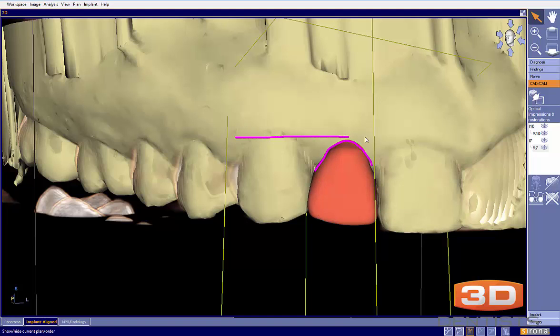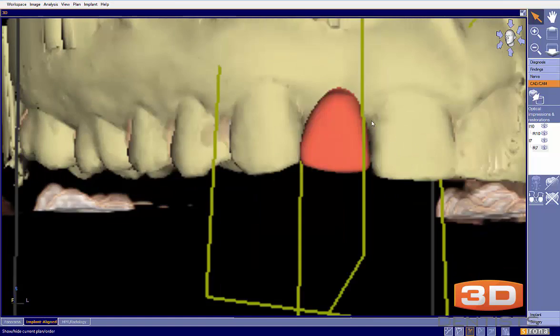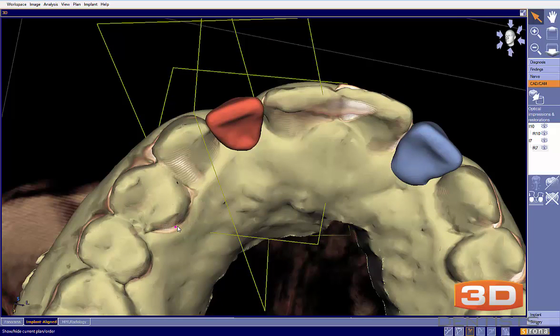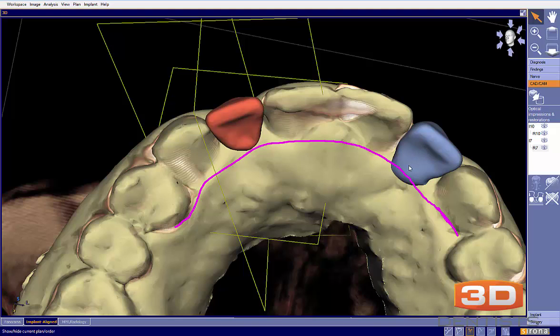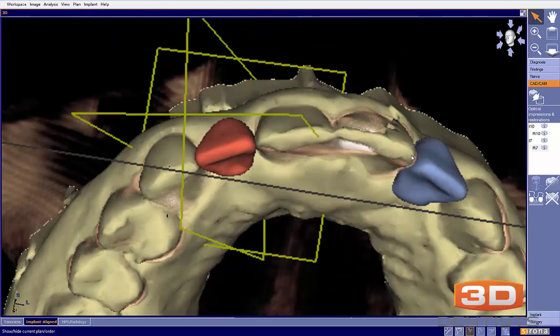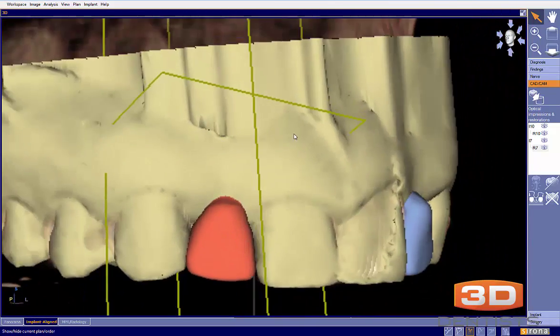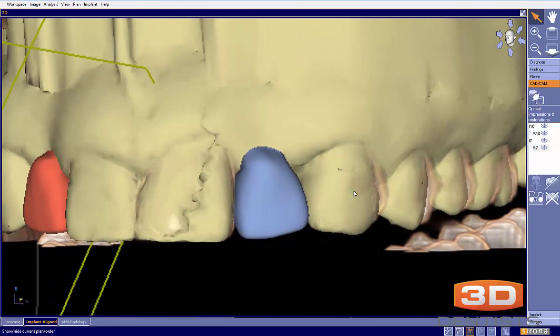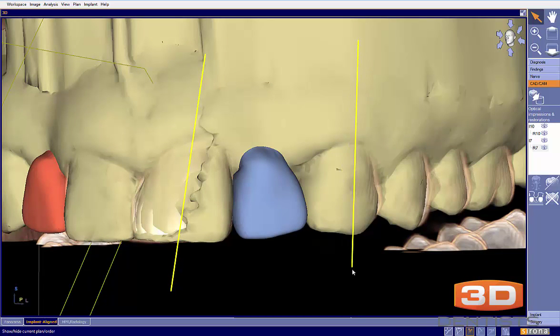Looking at the gingival margin on number seven, the lingual margin looks to be pretty accurate there. But as we go around, we can clearly see that our lingual margin on tooth number ten is quite inaccurate. My guess would be that it's probably not in occlusion or it's going to be bulky. This could lead us to placing an implant too lingual and having a bulky tooth there — it just doesn't accurately represent what we're trying to achieve. On this angulation, this part of the tooth is just not designed as ideally as we would like.